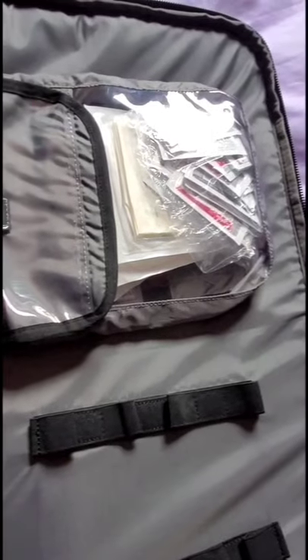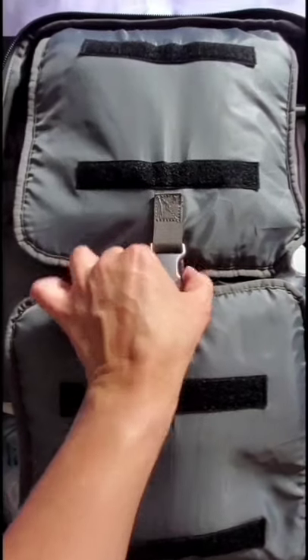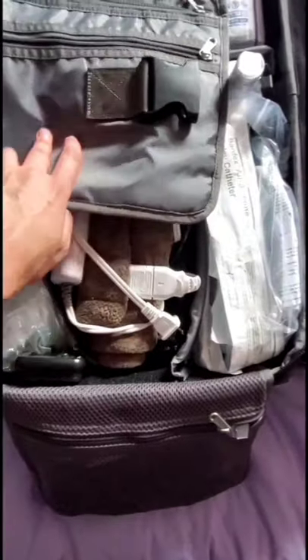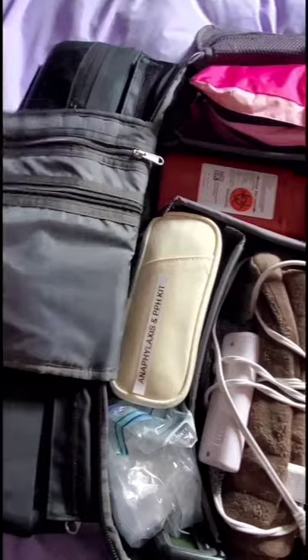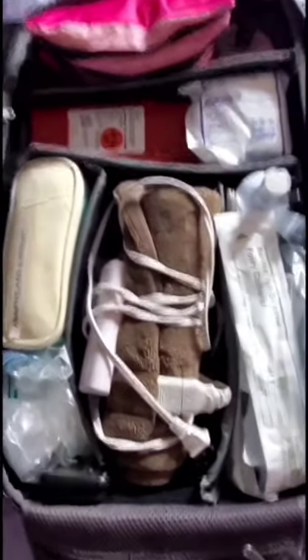When I open up this bag's top pocket I've got more sterile gloves and gel. This part you can just keep buckled together so everything stays nicely in place. When you open it up there are even more zippers — I'll show those in a minute. I don't keep anything in those extra zippers.